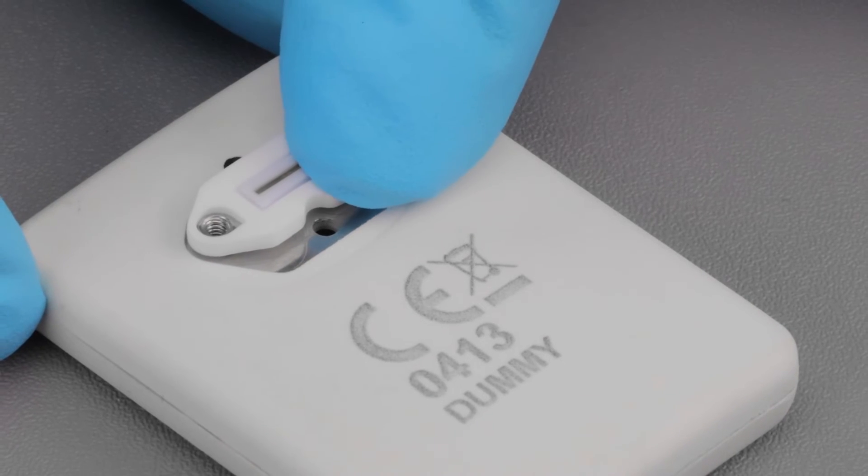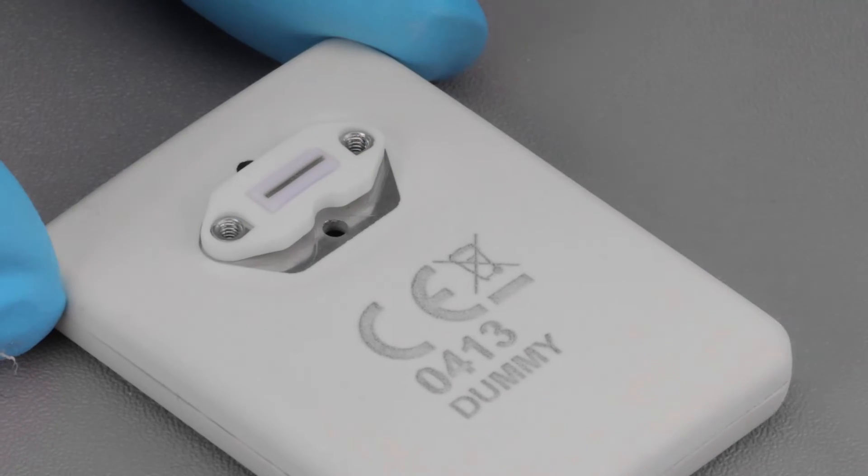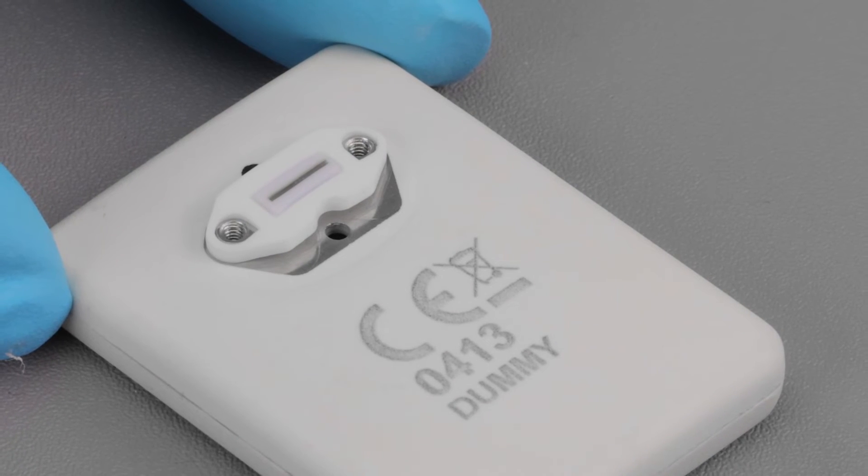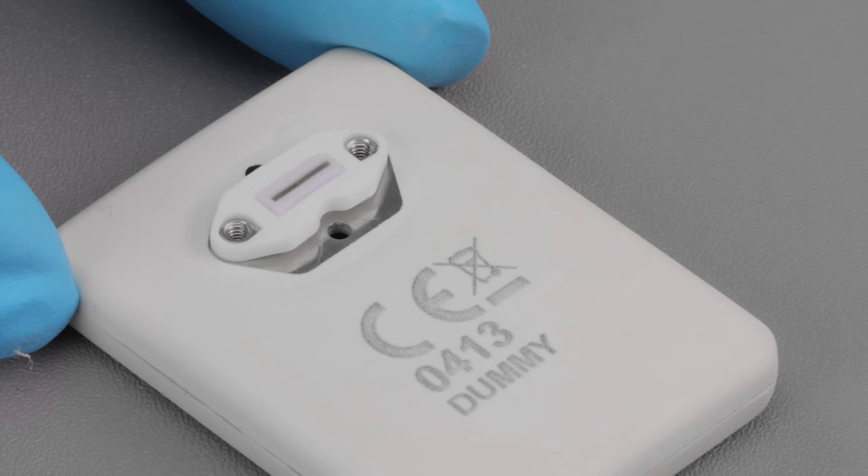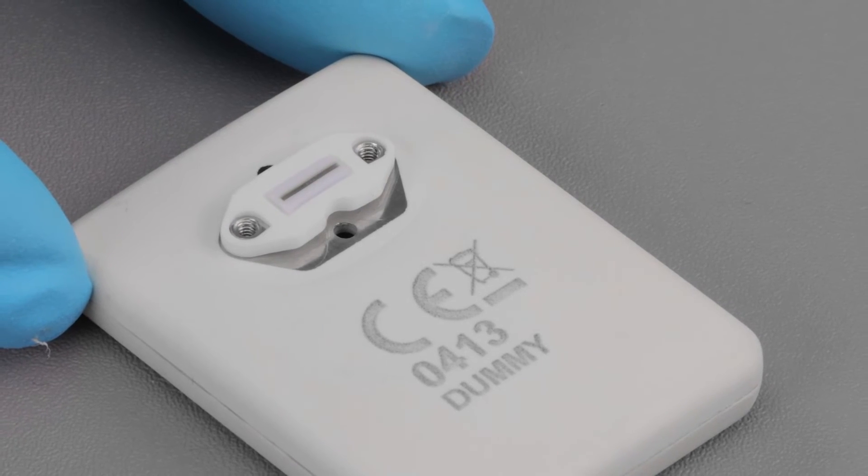After inserting the white frame with strip, apply a small amount of finger pressure around the outer edges to ensure that it is seated squarely in the cutout area. It is important that the strip be seated properly for the sensor to function.